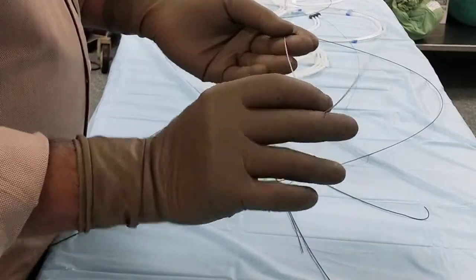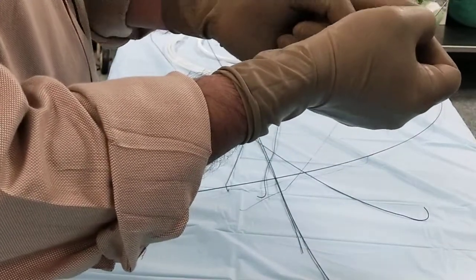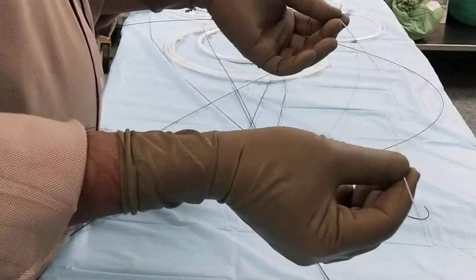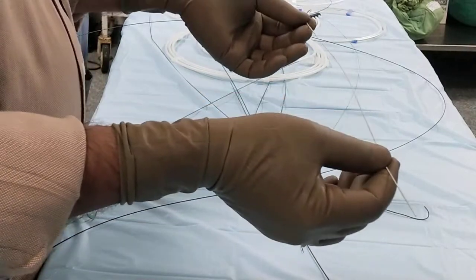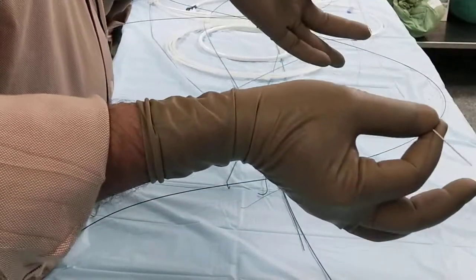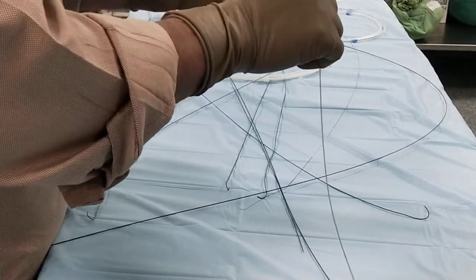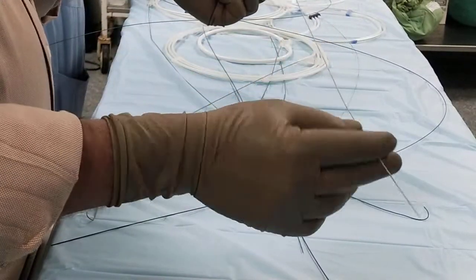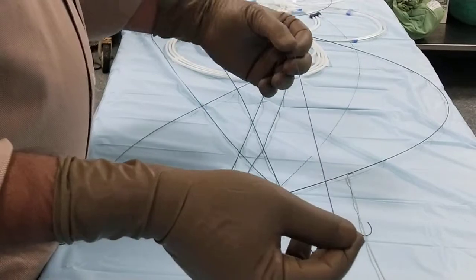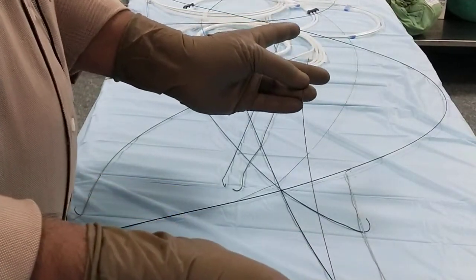This is steel spring coated. There is a spring and just because of the spring it comes back. You have to memorize this so you will never make a mistake in choosing a guide wire. We will set this aside and go to another guide wire. There are various accesses we can take — if we are in the cardiac unit, we are dealing only with veins or arteries.